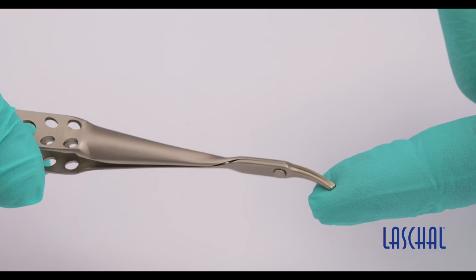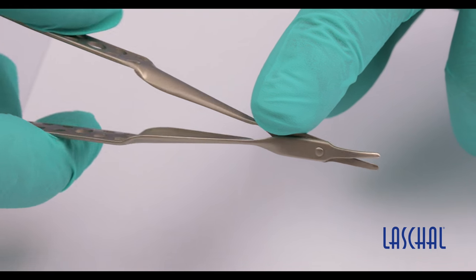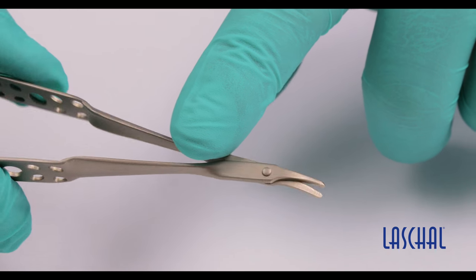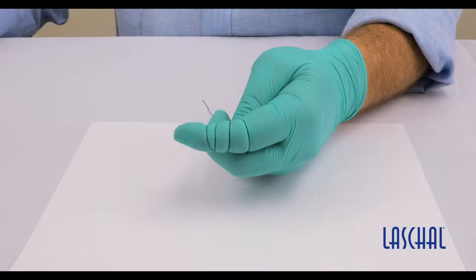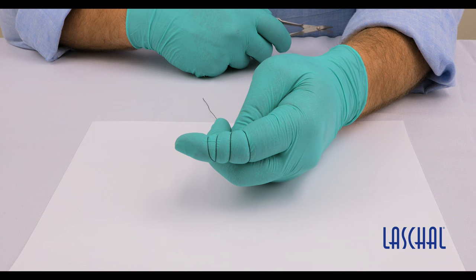The flexible material allows for more torque, which results in an increase in power and strength to the very tip of the scissor, which enables this design to be possible. Even though it is much lighter, it still remains sharper and stronger far longer than traditional stainless or carbon steel instruments.